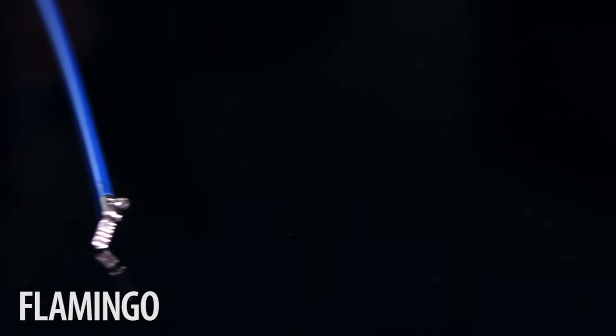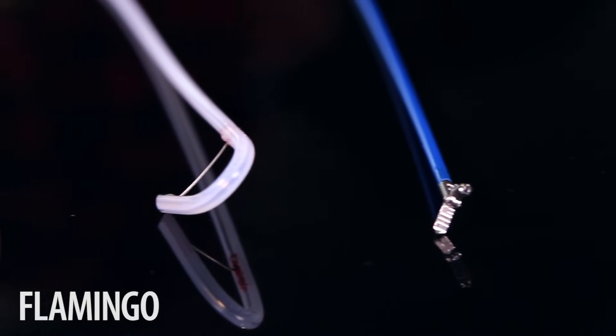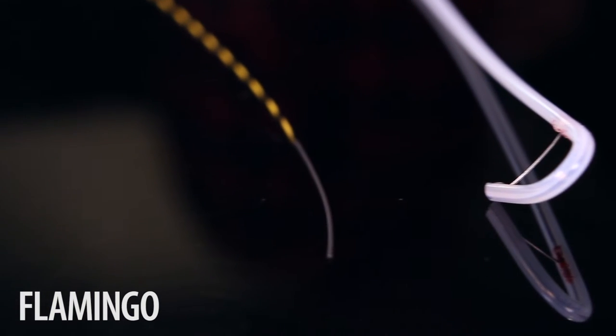The set contains the new Flamingo, a retrieval forceps for foreign body removal, and a guide wire.